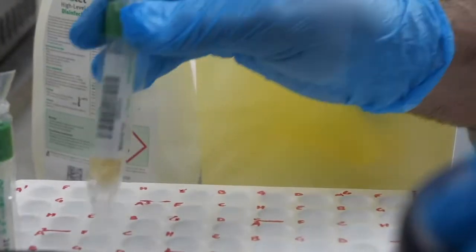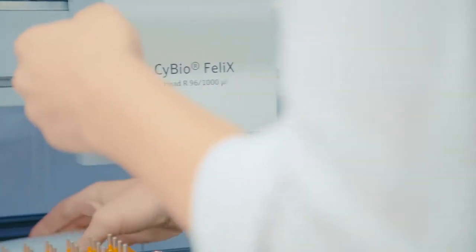What they have set up here is a very specific laboratory for COVID-19.